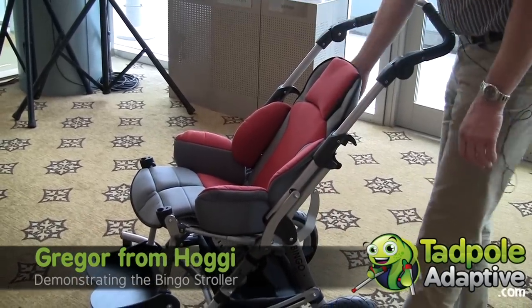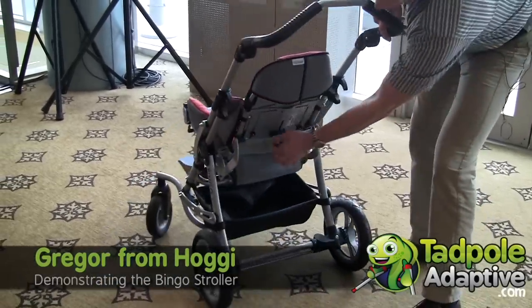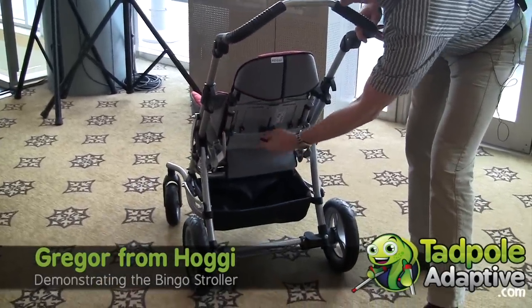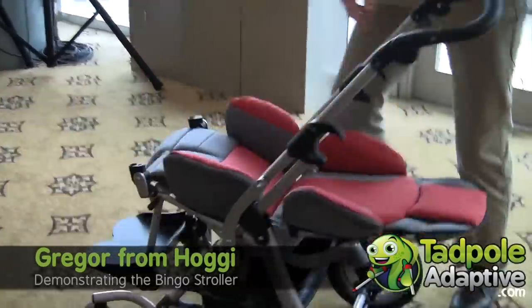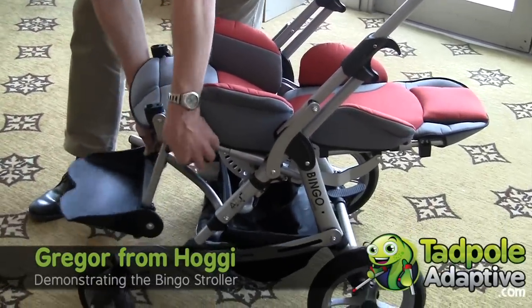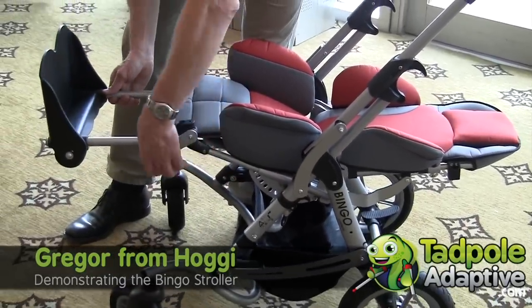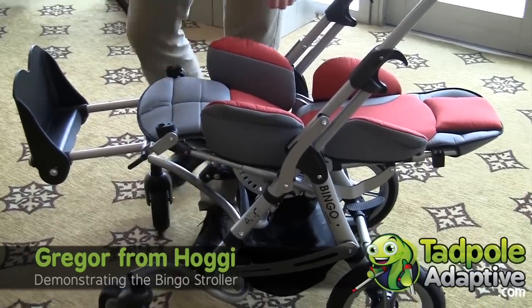In addition, we have a recline. The lever is here on the back — we open it and we recline. On top of that, again with the clamping lever, we can swing up the footrest so that we have a full recline and a horizontal bed.